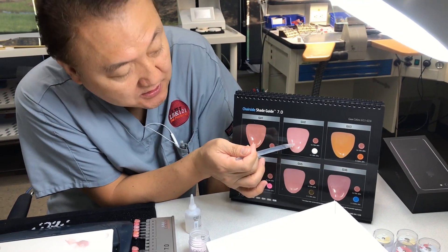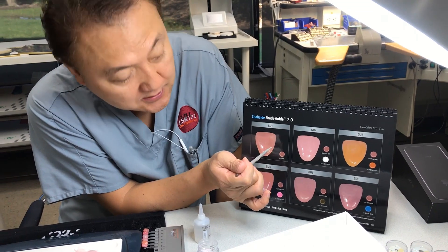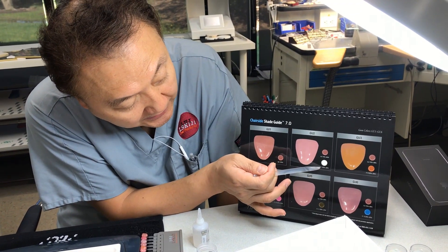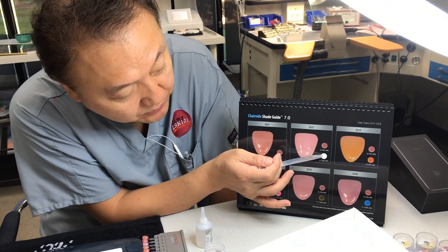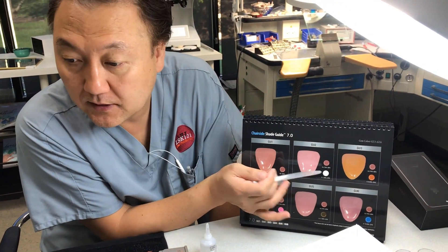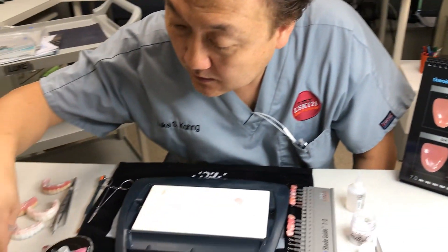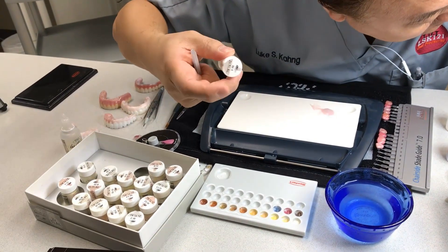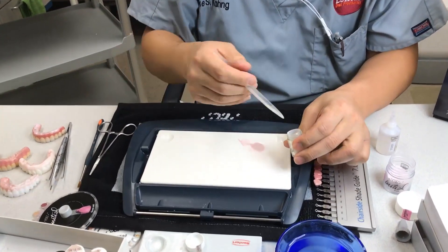However, if you want to match a color that is a little light — a lighter pink color compared to this — then you have to add IN-1, which is 25%, which is white. So I have IN-1 here, and then I put the white.